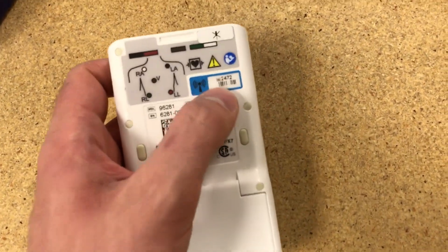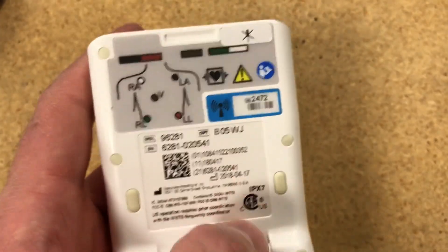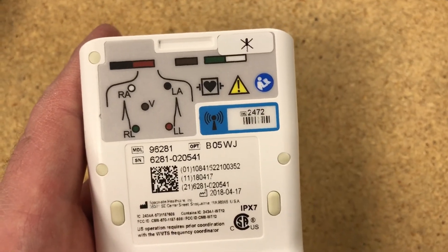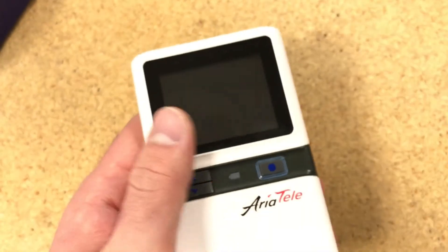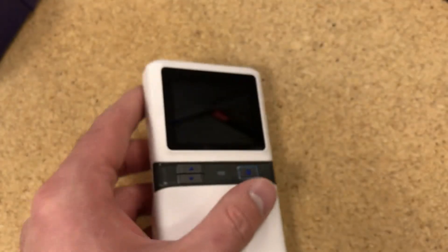Another is that each of them has their own ID, their channel ID. So this one is 2472. And that's important when it comes to using these devices.